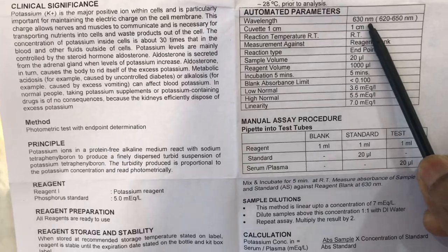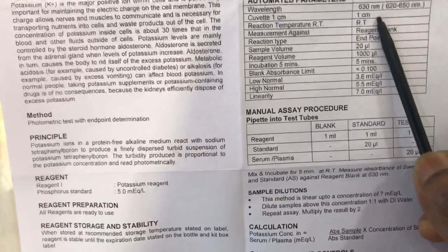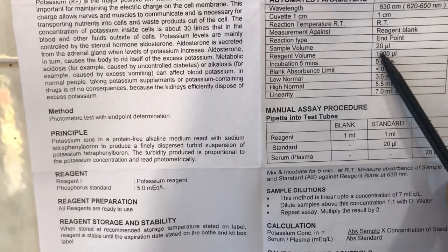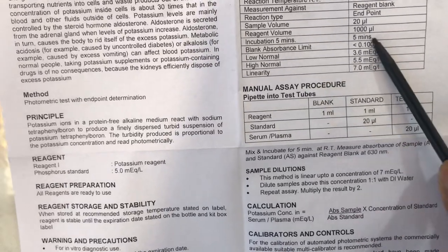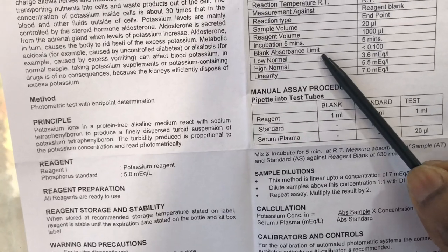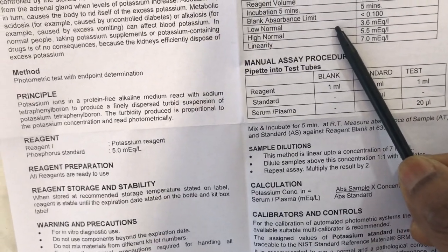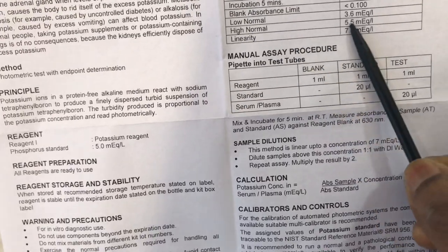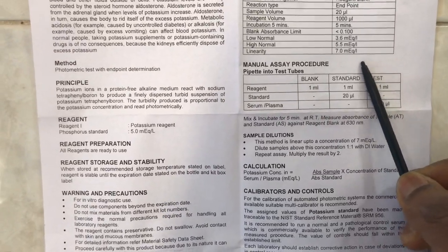The wavelength is 630 nanometers, but any wavelength within the acceptable range is fine. The light path is 1 centimeter, reaction temperature is room temperature, and you need to do a reagent blank. Sample volume is 20 microliters, reagent volume is 1000 microliters, incubation time is five minutes, and there is a blank absorbance limit. The reference range: low normal is 3.6 mEq/L and high is 5.5 mEq/L, with a linearity up to 7.0 mEq/L.